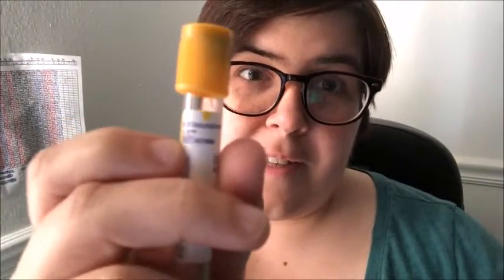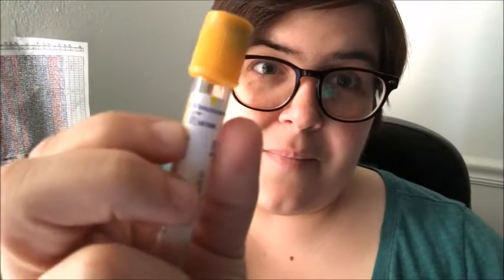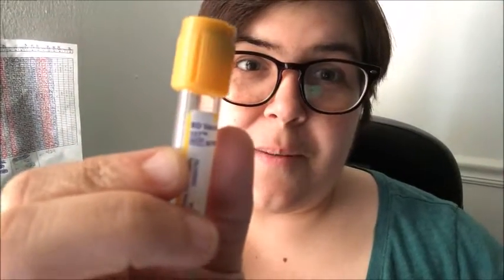Just know that if you ever get confused about what additive is in a tube, just look on the label — it's there. For example, this one says SST, which stands for serum separator tube, and this one says sodium citrate. This doesn't need a super long explanation, but I wanted to answer it. Try not to overthink phlebotomy-related things; it is a lot more simple than you give it credit for.